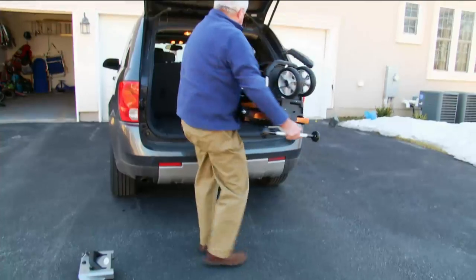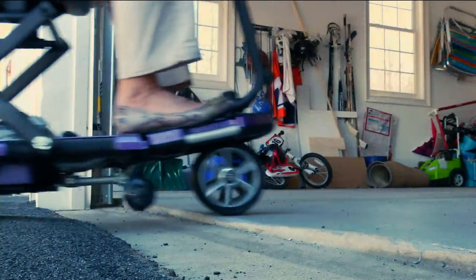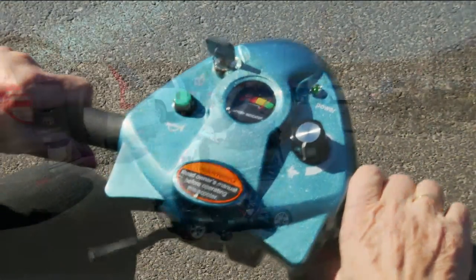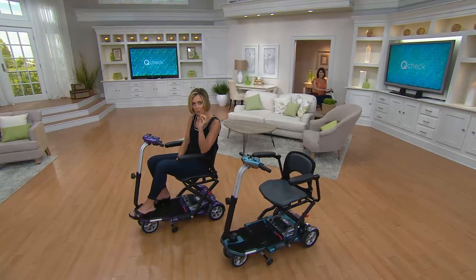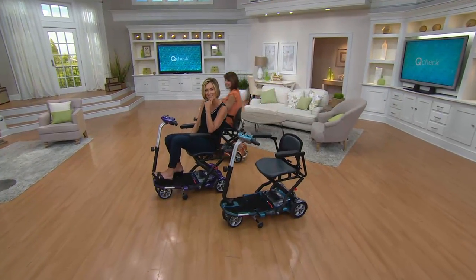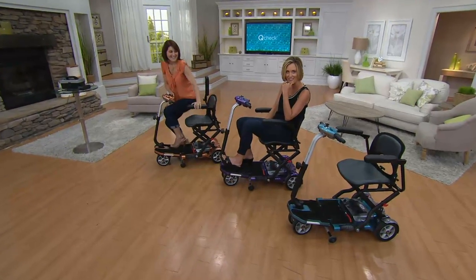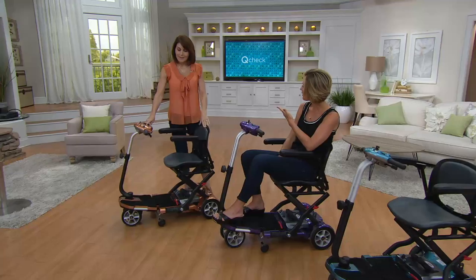This is a scooter that folds up — TSA approved so you can ride it right up to the airline. Put it in the back of your car. It is such a great way to get your mobility back this summer, or to give it back to a friend or a family member. With me right now is Denise Repko, who brings us great in-home care items just like this one from EV Rider. She always likes to say EV is just this easy.